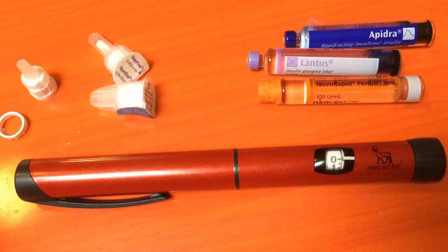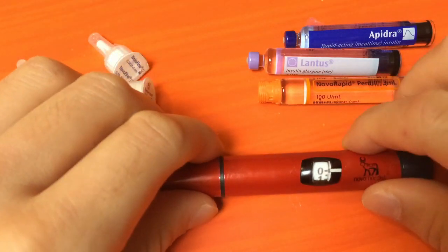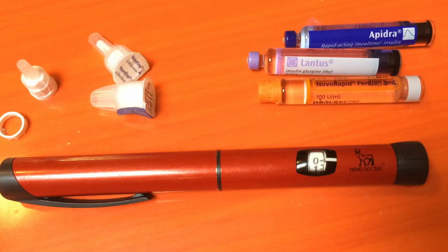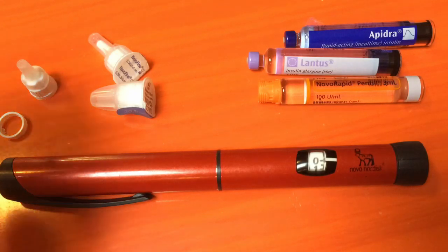I started with NovoRapid and have been using it for many years. I got the pen, but then I changed to Apidra and Lantus. Well, I was already using Lantus, but I changed to Apidra for my short-acting insulin.